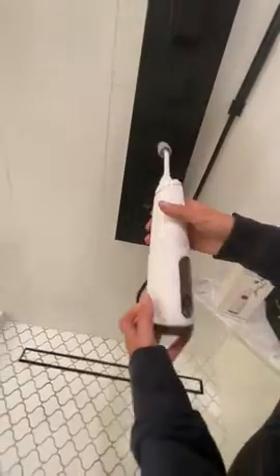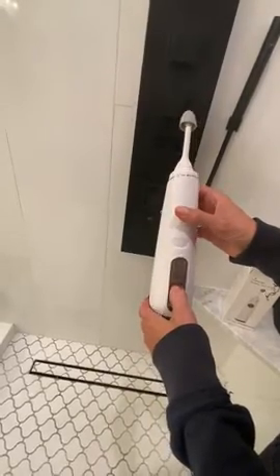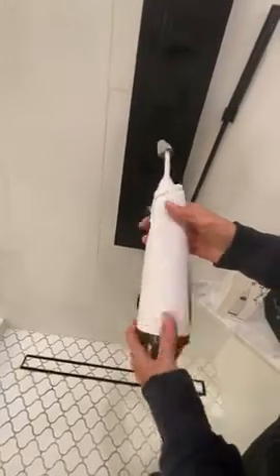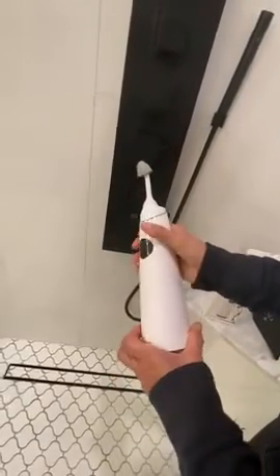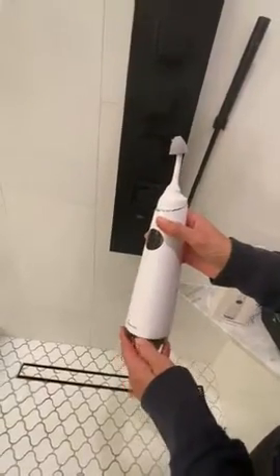When you turn it off, you can see there's still some water left in there. It has a 280 milliliter reservoir, which is a little bit less than 10 ounces. This is a really high quality item — I like the nubs on the side, which give you a nice feeling when holding it. It would make a very nice gift; it comes in a great box and the bag is high quality.